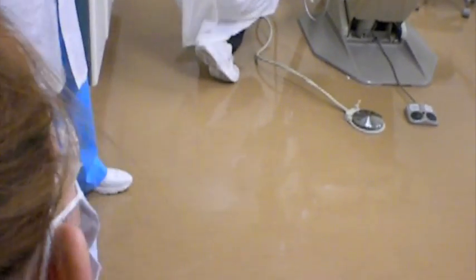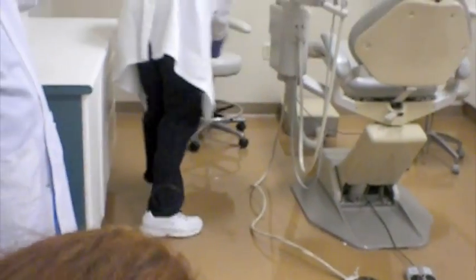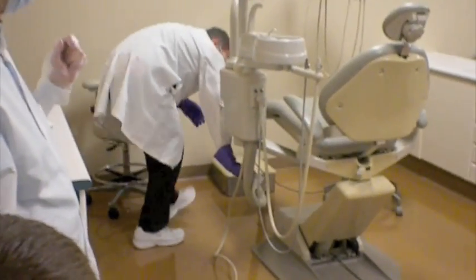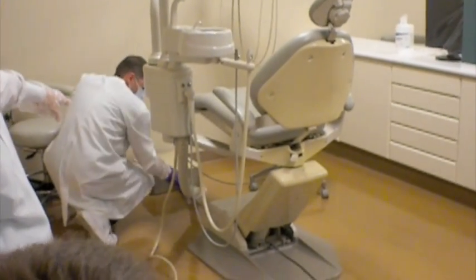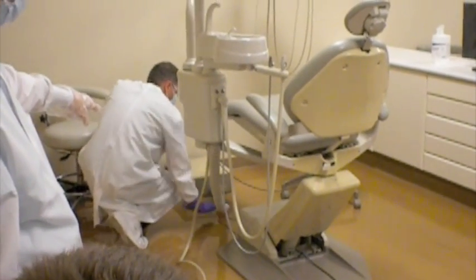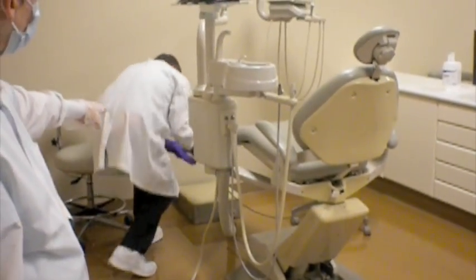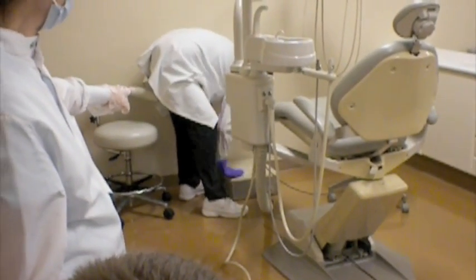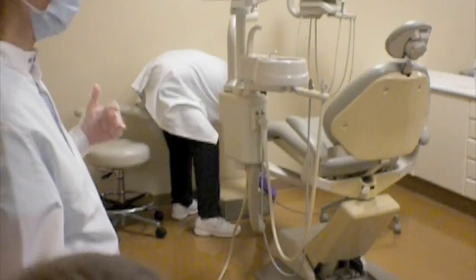He'll then move to the umbilical cord, which is the large cord that houses tubing. He'll do the top of it, the bottom of it, and the electrical cord that's in the front of the unit will also be done at the same time, to the utility box that sits out in front, wiping in one direction, the front of it and the sides of it.